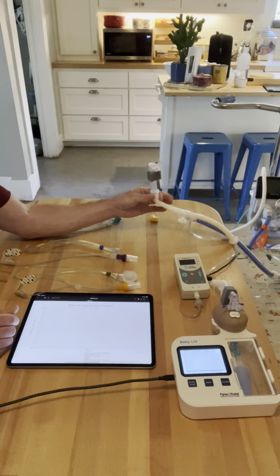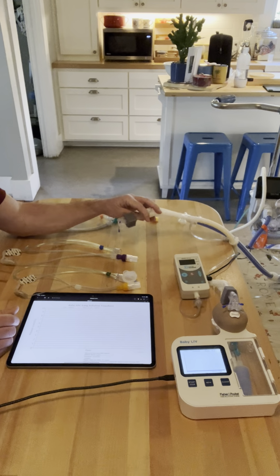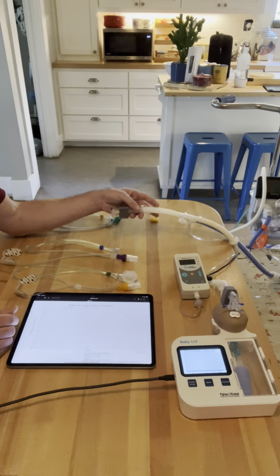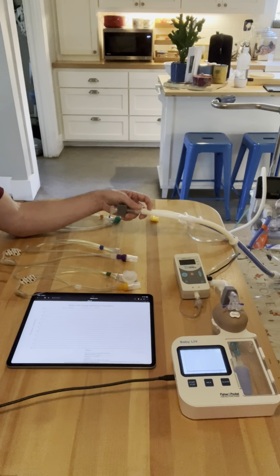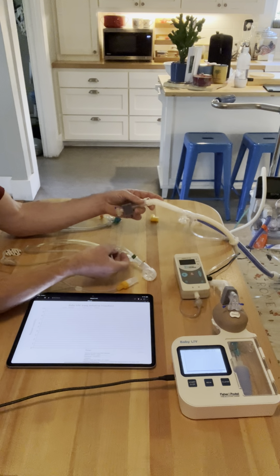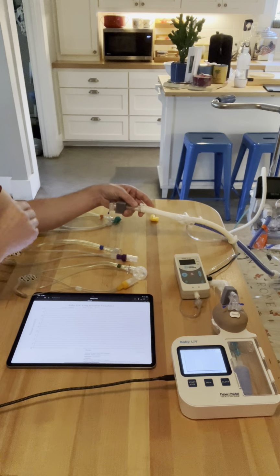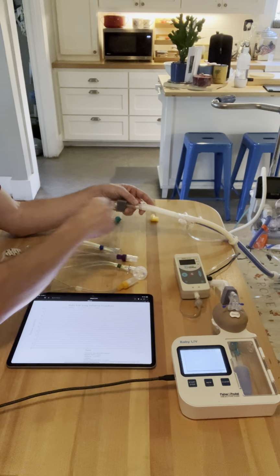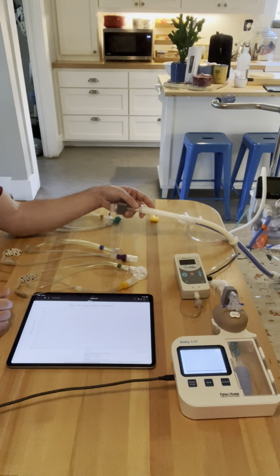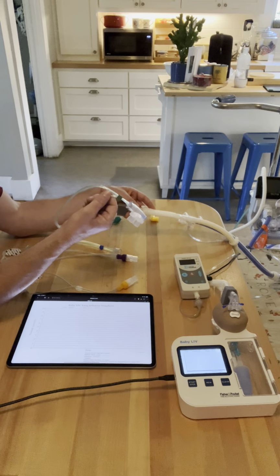Anyway, there are three aspects on this interface that allow it to provide that constant or continual positive airway pressure. One, it has large bore tubing. If you look at a CPAP interface, this tubing is relatively large. The reason it's large is because we're driving a lot of flow and a lot of pressure through it. When you have a narrowing of the tubing, you have a restriction on how much flow you can drive into that. If you look at a cannula, it has very narrow tubing.